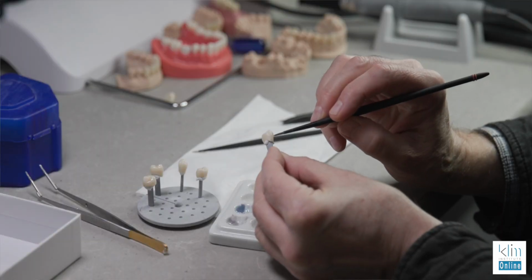And then we can also create unique incisal edges looking at a tooth next door, whether it be a photograph or in real life. I just did that the other day on an anterior implant on a central, where we can customize that and really make it blend in with 1 or 2 firings. And it's a nice tool to have, even if you're not an in-office CAD/CAM person.